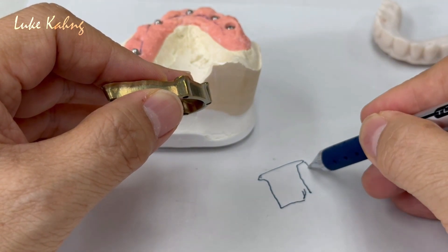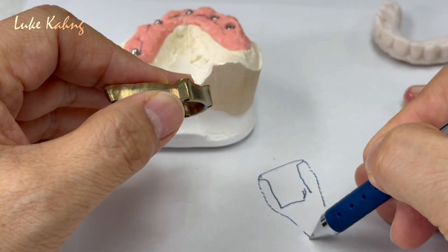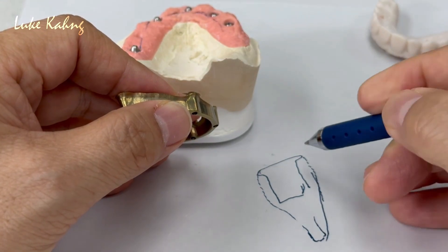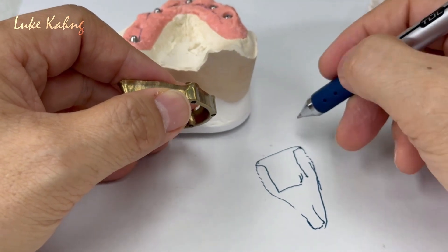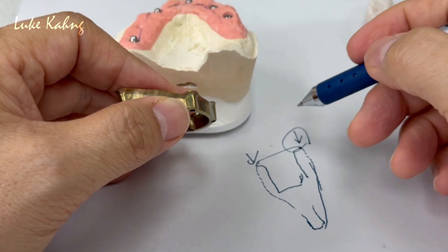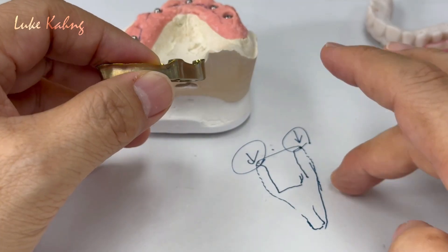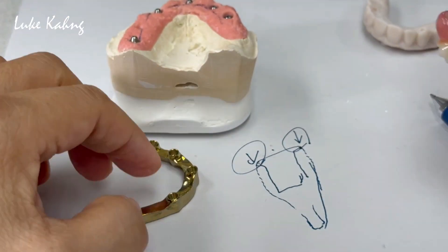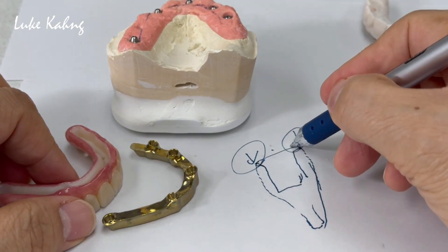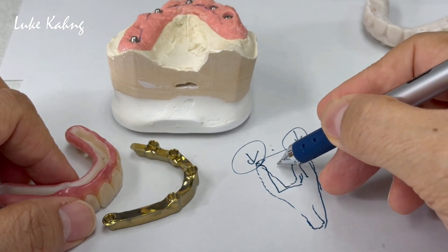The latch here — you see this, my drawing, like this kind of shoulder. The restoration will be here. We make the teeth. In that area, I want to go to a better, smooth transition as much as possible — that's the key. This is the best hygiene approach. Design from this starting point and try to get this as much as possible.